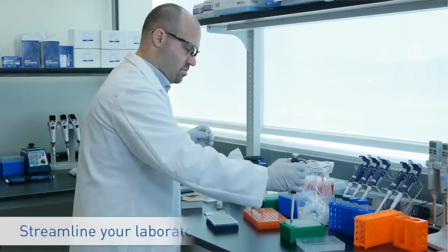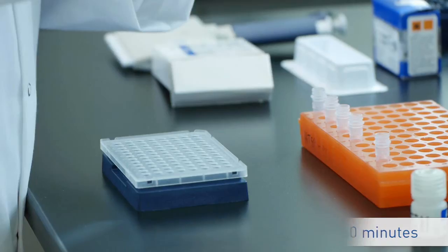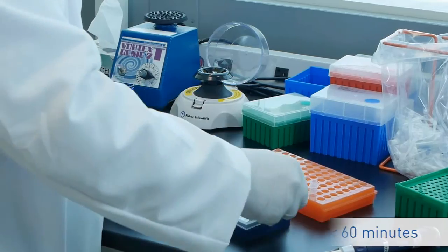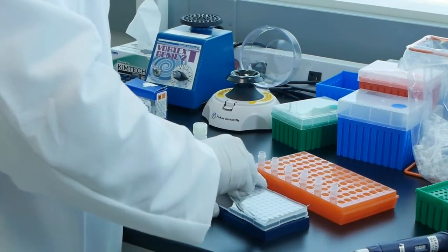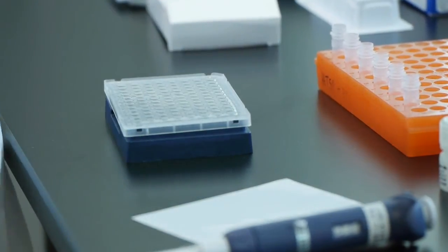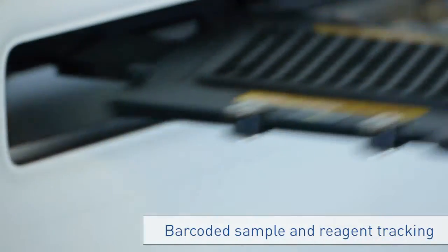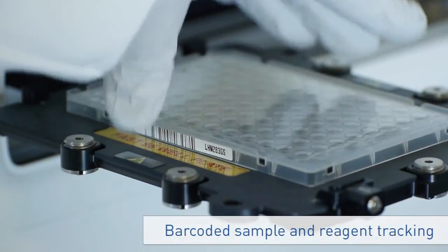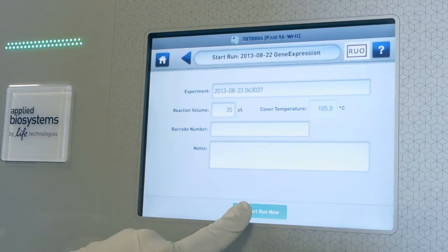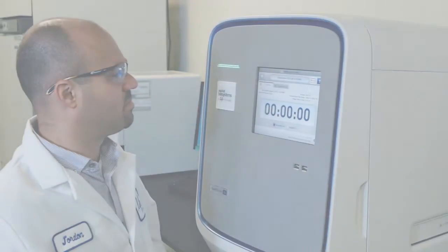The QuantStudio DX streamlined instrument and assay workflow reduces your time to results in less than 60 minutes. IVD tests are conducted using a test definition document with predefined run and analysis parameters to minimize run setup time and effort. Setup is fast and easy with barcoded sample and reagent tracking. One click on the touchscreen interface starts cycling and imaging — no instrument programming is required.